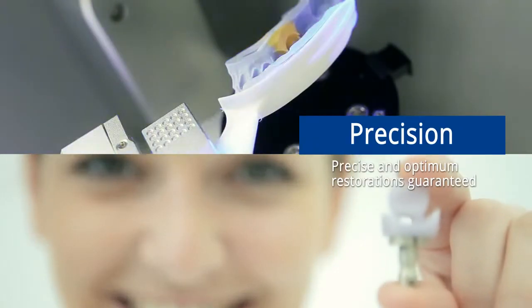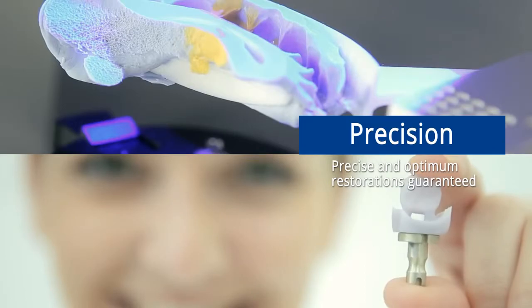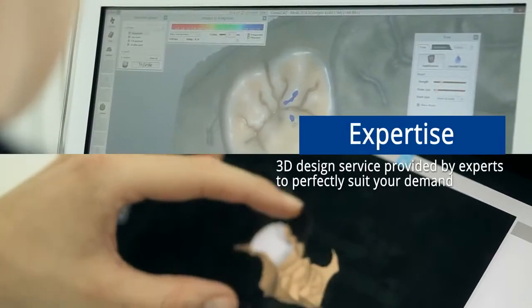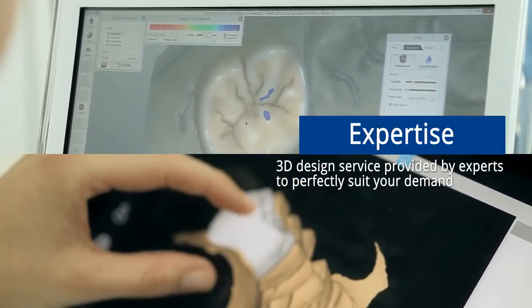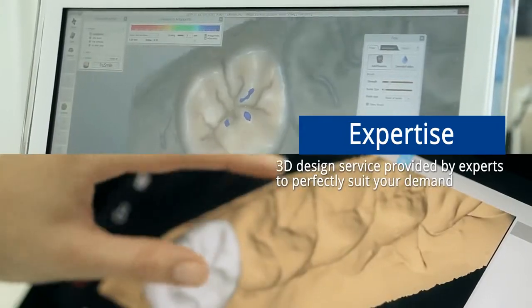Precision, precise and optimum restorations guaranteed. 3D design service provided by experts to perfectly suit your demand.